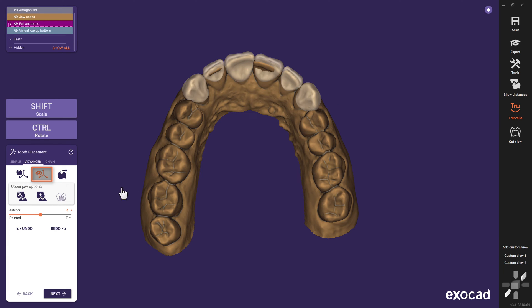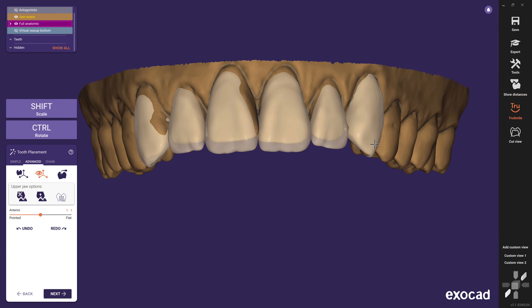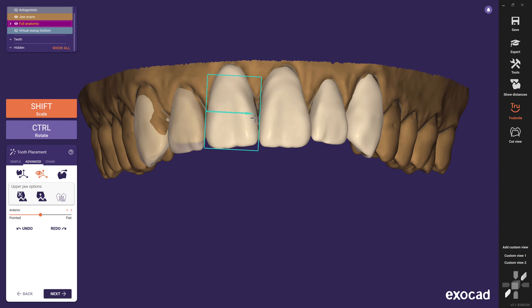I then click on Next to do the setup in more detail. Now we can access the full power of modern tooth placement. We start by using the chain mode, which is a great way to resize all teeth together and divide the available space evenly. Here I choose the free-axis selection scaling to individualize the tooth setup one by one. If you want to modify specific details like cervical or interdental, you can free-form them right away without leaving this step.